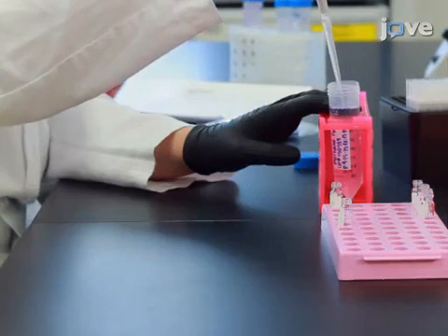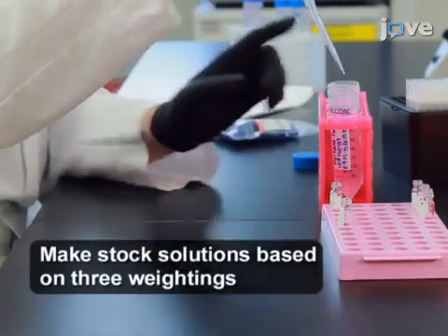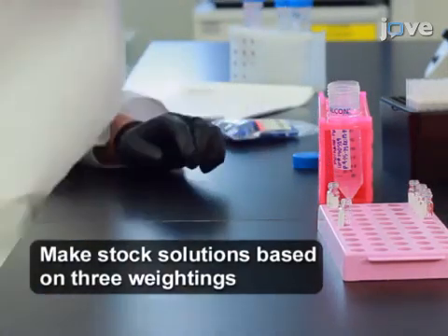First, prepare stock solutions in pure methanol at a concentration of 1 mg per mL for tacrolimus and a concentration of 10 mcg per mL for D2-13C tacrolimus.